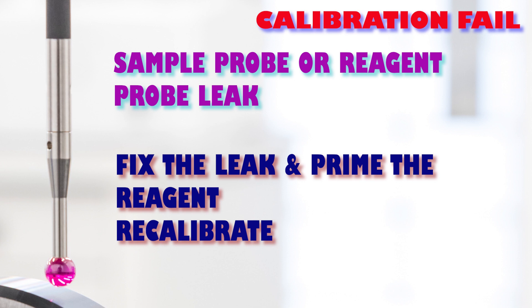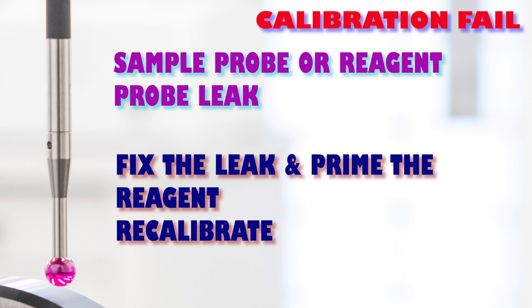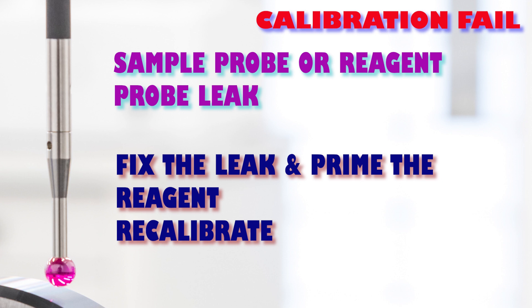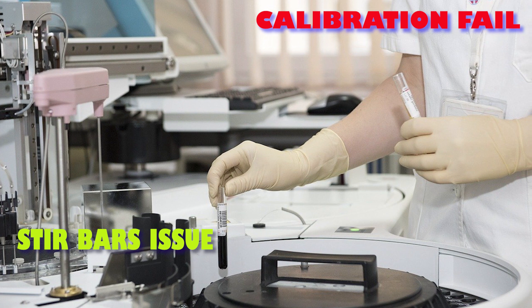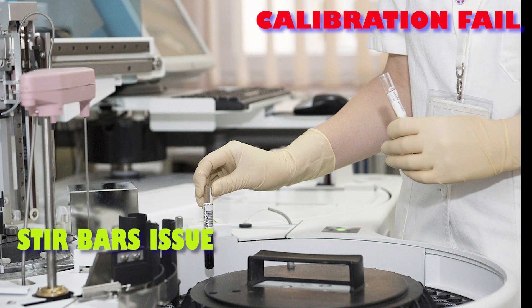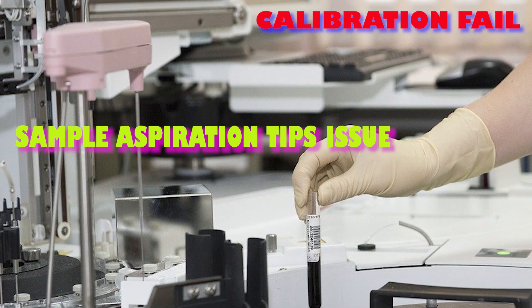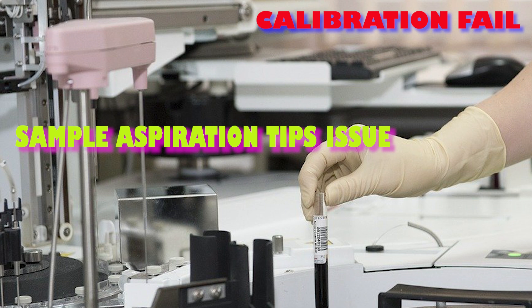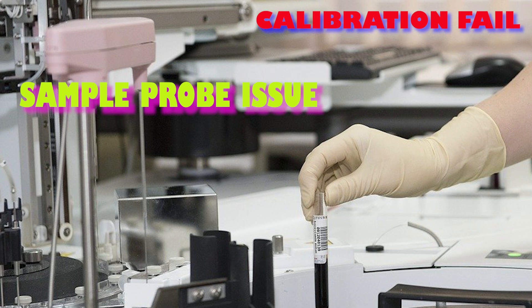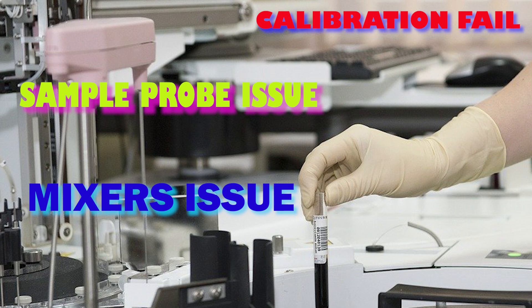Check for any droplets of fluid on the probe tip, which can indicate that the sample aspiration probe or the reagent probe is leaking. We need to repair the leakage to fix this issue. Sometimes the reagent and samples are not mixed properly — the stir bars are stuck and need to be fixed. Sometimes sample aspiration tips are worn and we need to replace the syringe plunger rods. The probes or mixers may be scratched or damaged, causing improper mixing or improper dilution of the sample. All of these can give different values at different runs.